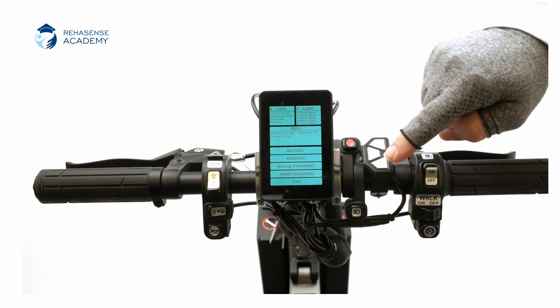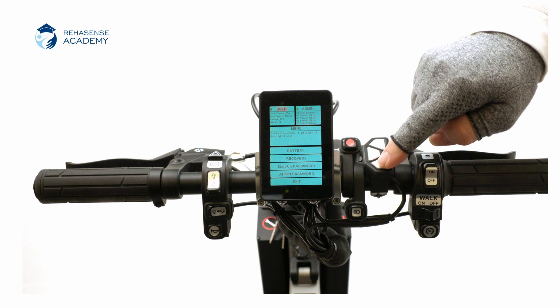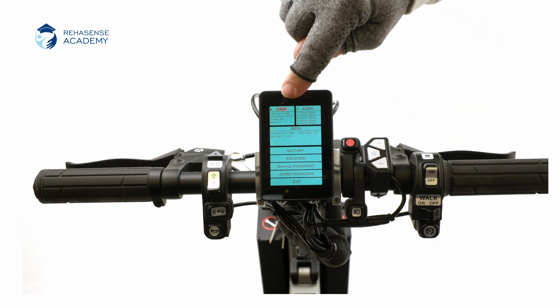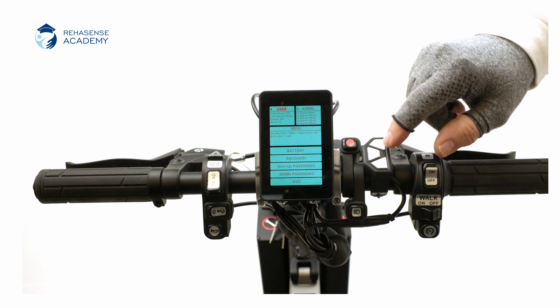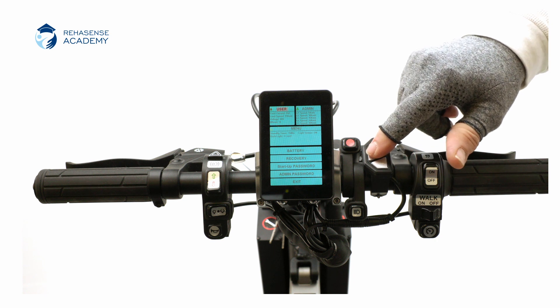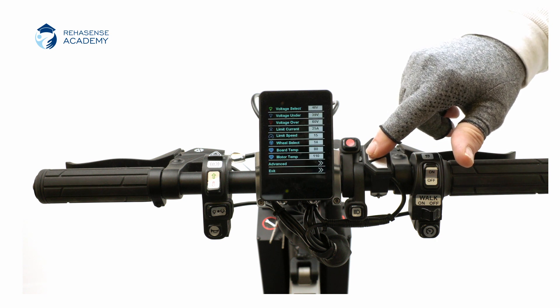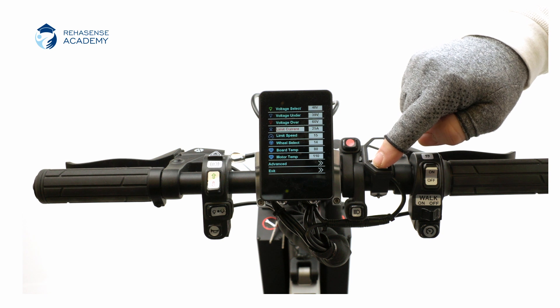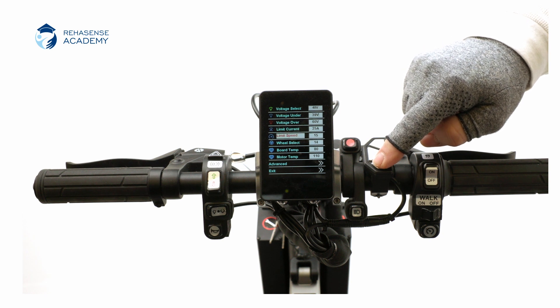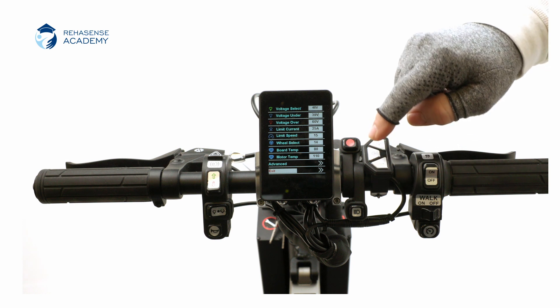The user menu is for information only and is set by the administrator. Use the minus key to scroll down all the way to exit. Confirm with the power button and you will revert to the main menu page.